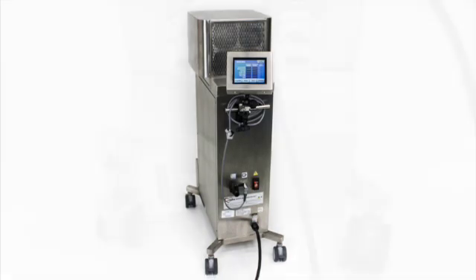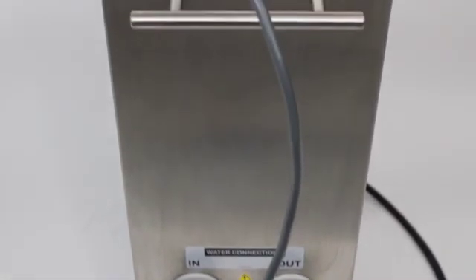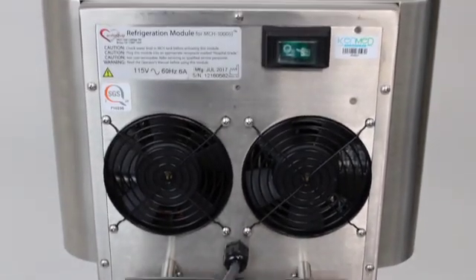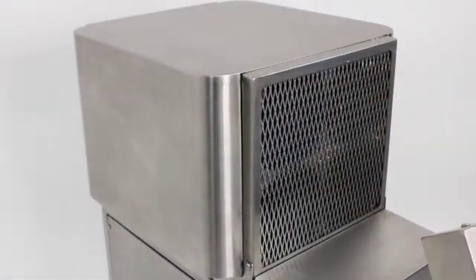The cardioplegia shared channel delivers cold water from the cold water tank or temperature controlled water from the main circuit, eliminating the need for an additional cardioplegia unit.